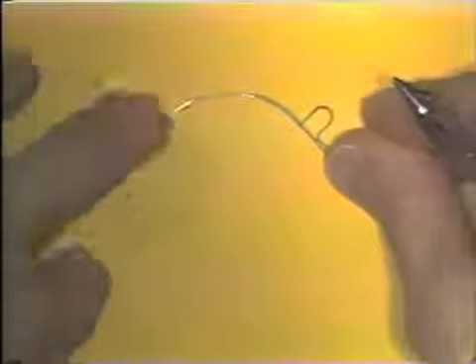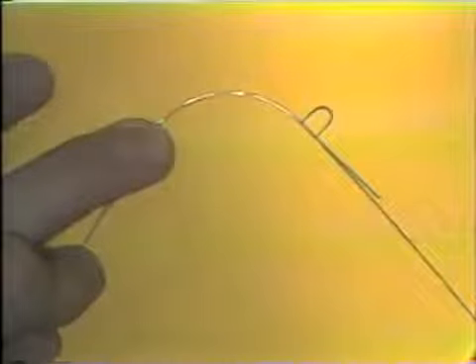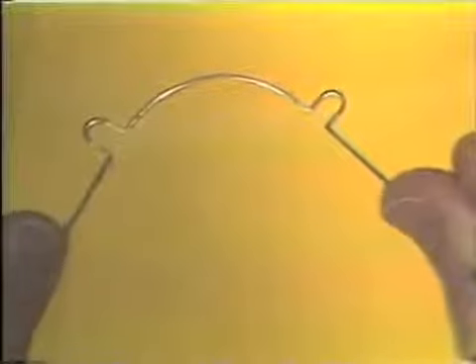The loop on the opposite side is bent using these same techniques, and the end resulting wire has this appearance. The wire rests directly over the black lines on the pattern, and the wire is flat on the table surface.